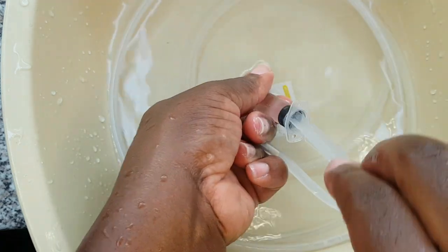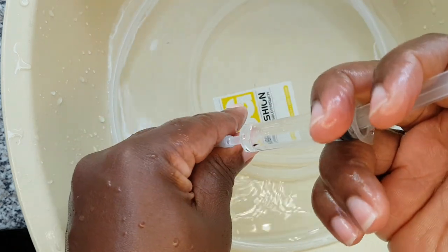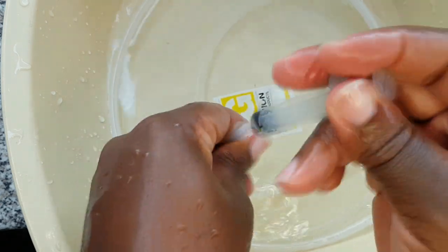Now I do have a tip for you. Once you're done with this step, you're going to have to let your tubing air dry.